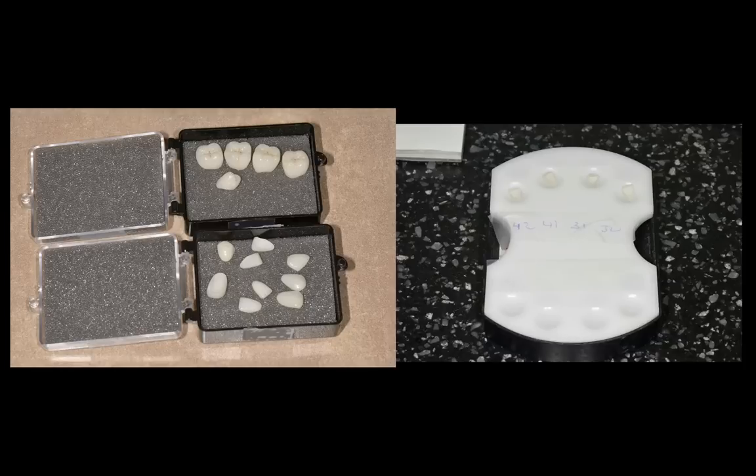We use a device called the MPI to verify that the bites are identical, and I'll share that video in the next month or so — it's basically part of the training from my occlusion design course. He then sent me back the lower porcelain restorations. We had anterior feldspathic layered ceramic restorations — veneers on the lower incisors and cuspids and veneers on the bicuspids.